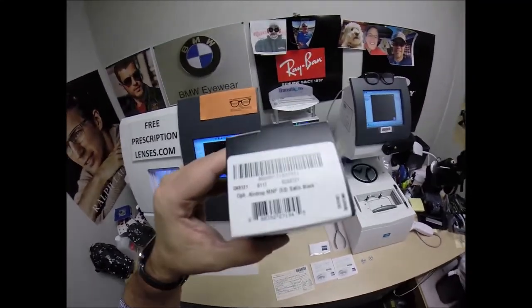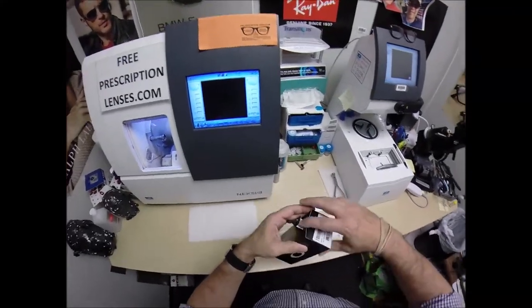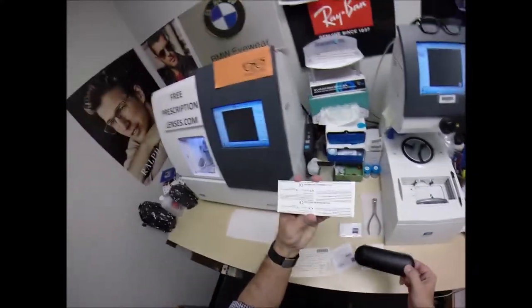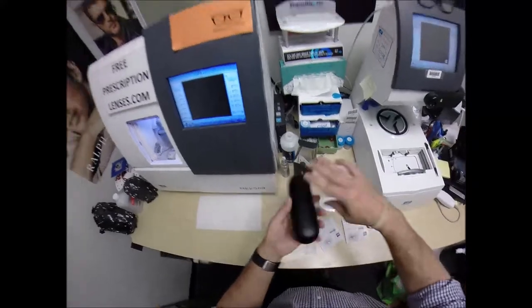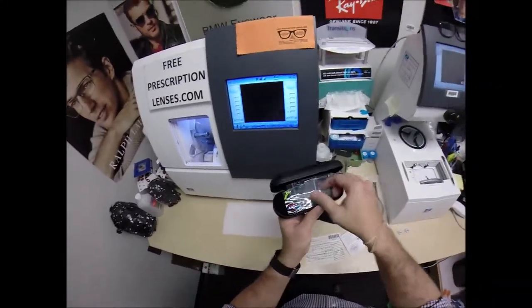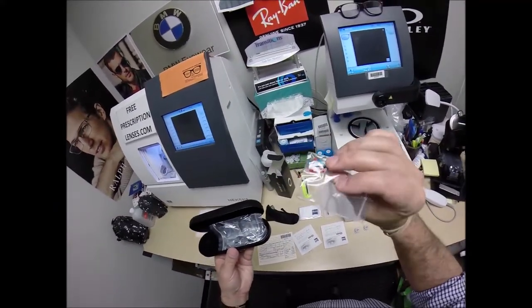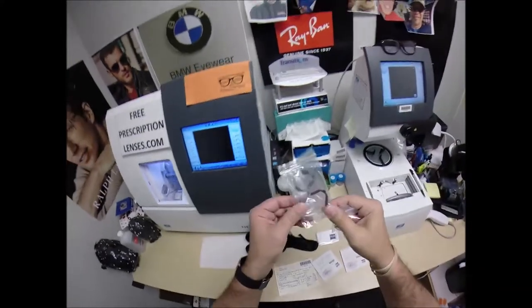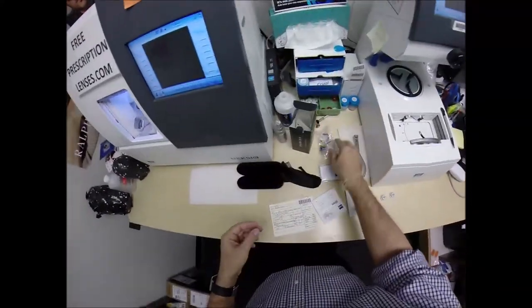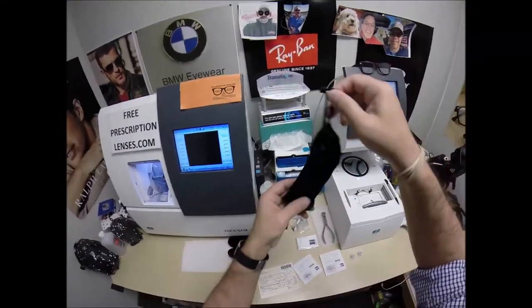Size 53 in the satin black. I'm going to take everything out of the original packaging as Oakley sends it to me. You have got your Oakley junk mail. Your Oakley hard shell case. Inside the case, the 8121 comes with extra logos to put on the side of your temple. It even comes with replaceable nose pads so you get the best possible fit. But inside, this also doubles as a carrying bag slash cleaning cloth.